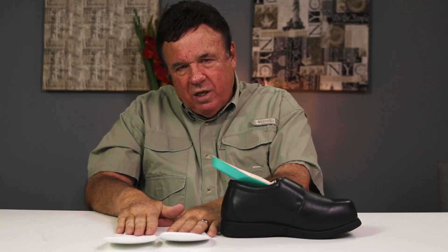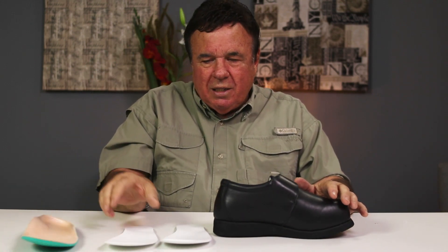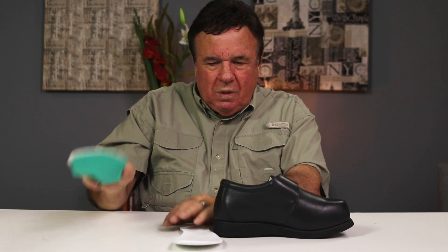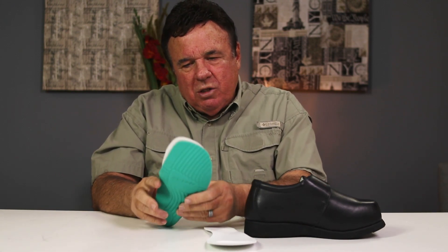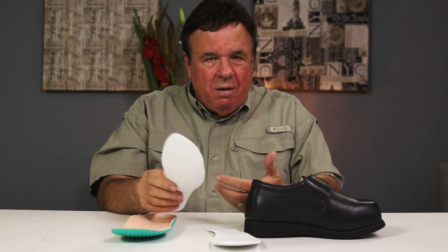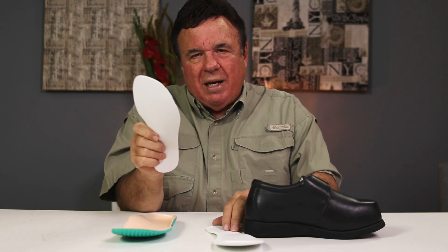The main purpose of removing the spacers is to give you more room. This is what we call a filler, a spacer, or a thin insert. If the shoe is still a little too tight, take the insert out and put the spacer in, wear them for three or four weeks to break the shoe in, then take the spacer out and put your insert back in. The main reason for this video is I don't want you to put a spacer on top of the insert — it goes underneath. We developed this because there is a foot discrepancy in many women and men and we need to tighten up the left or right foot. It can go either way, and it goes underneath so you can adjust it. You can adjust this in almost all our shoes — as long as it has a removable footbed, we will provide you with inserts, whether it's one set, two, or three, depending on your particular situation.